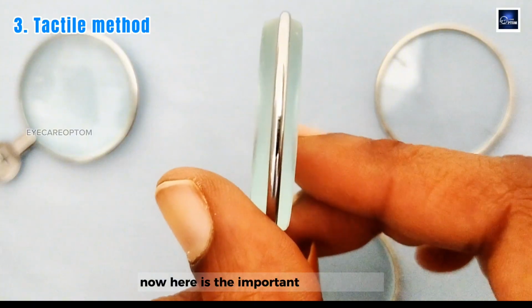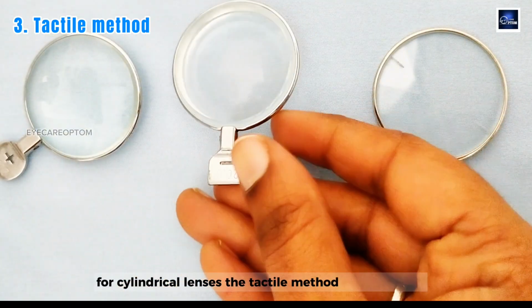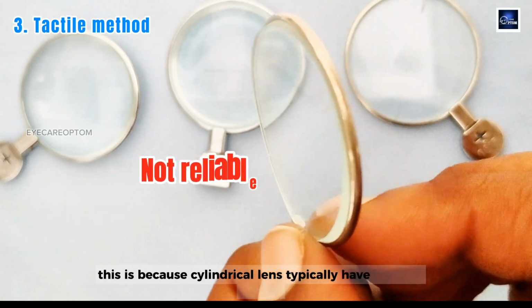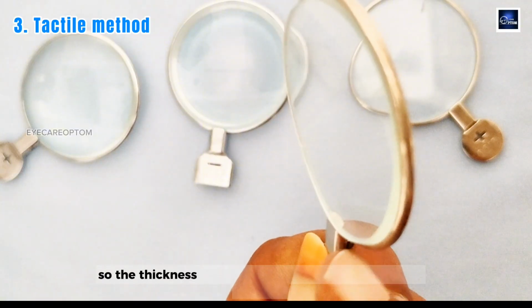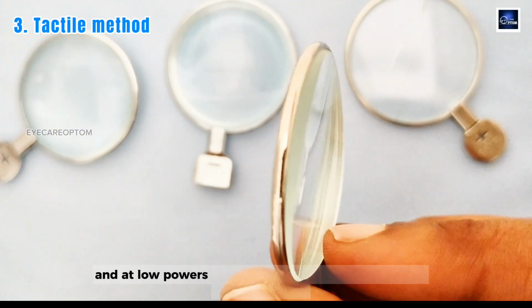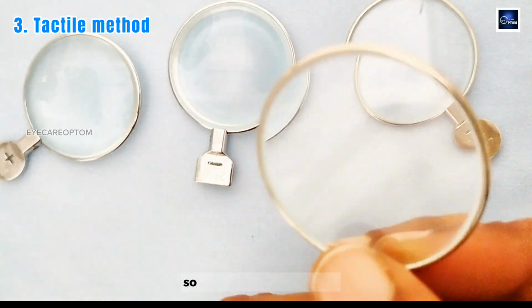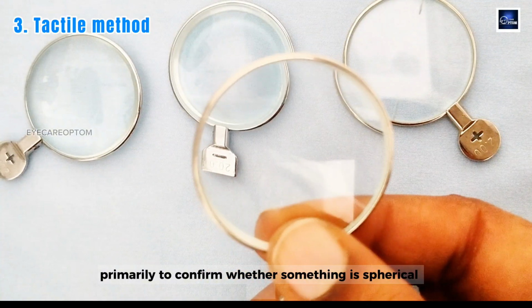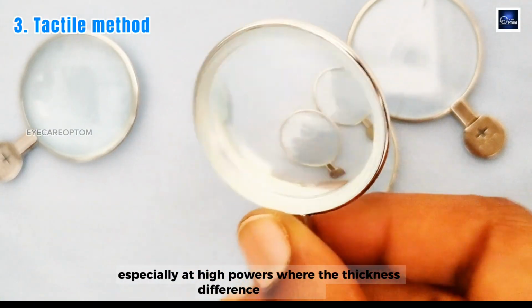Now here is the important clinical point. For cylindrical lenses, the tactile method is not reliable. This is because cylindrical lenses typically have one flat surface and one curved surface. So the thickness change is only happening along one meridian, and at low powers this difference can be very minimal to feel by hand. So use the tactile method primarily to confirm whether something is a spherical lens, especially at high powers where the thickness difference is obvious.